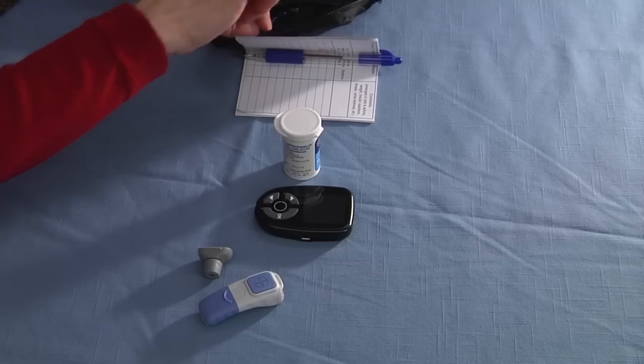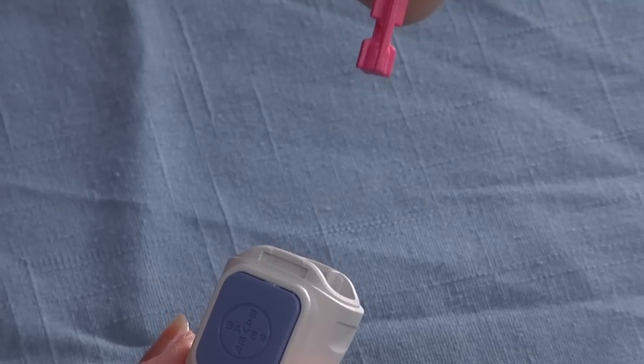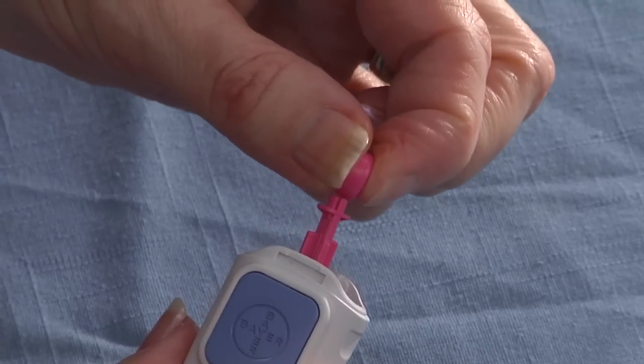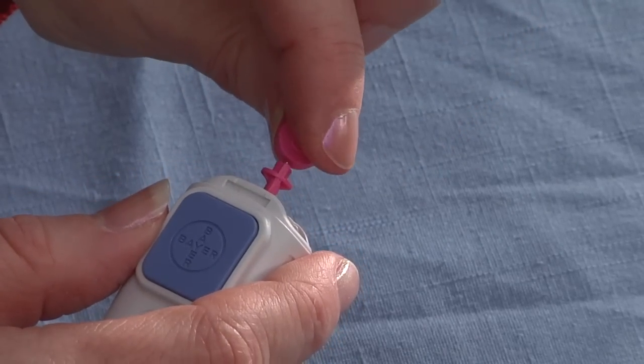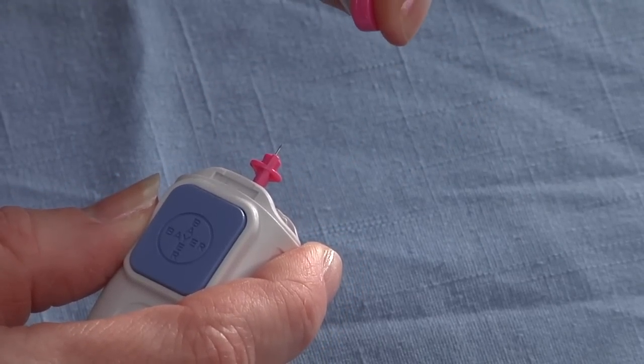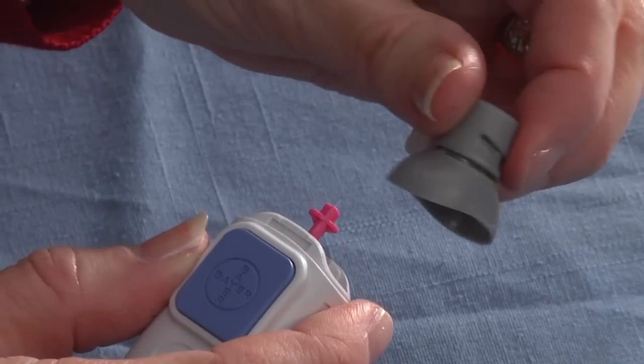The next thing I need is a lancet needle. I like to put my lancet needle directly into my lancet. It will only go so far down. Twist the top and take this off. Then go ahead and place the cap on.